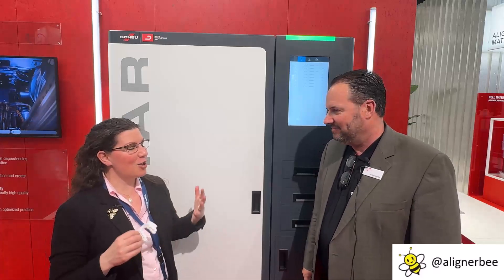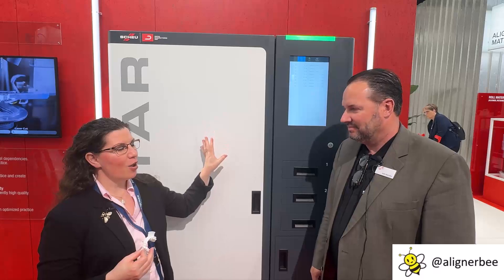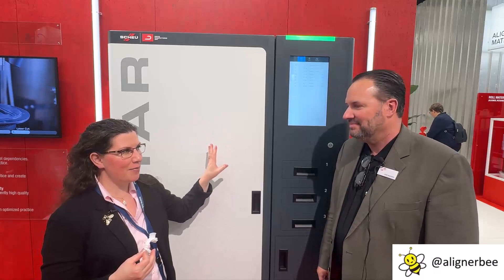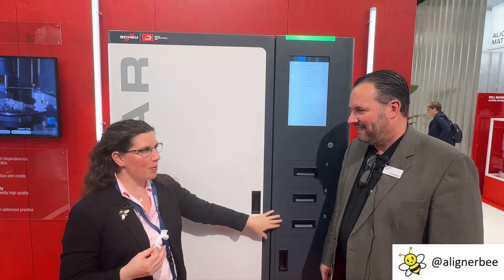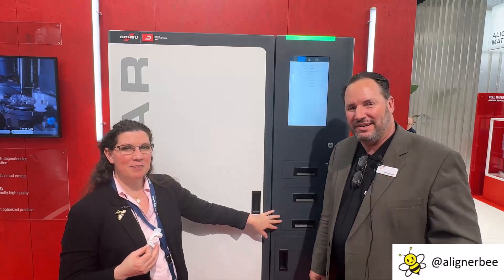So with this current process, I can take my patient's intraoral scan, place it into my software and send aligner set number one, and it will actually 3D print, thermoform, laser trim, and sort per patient? Correct — in 30 minutes, two aligners.